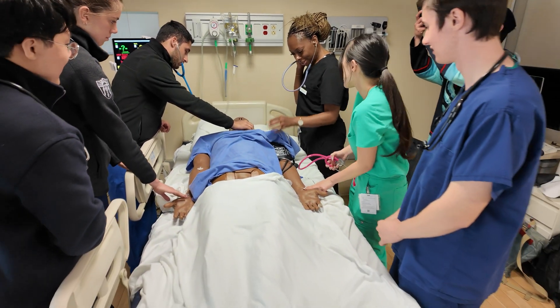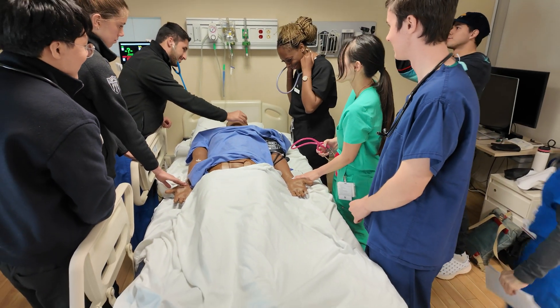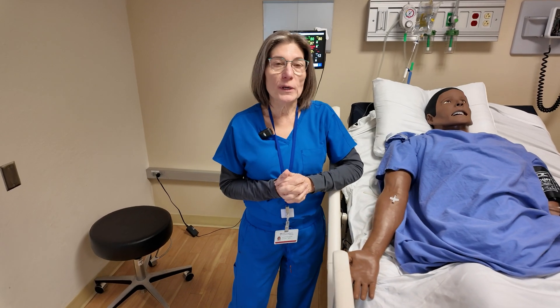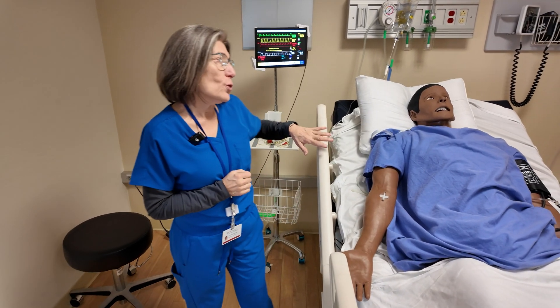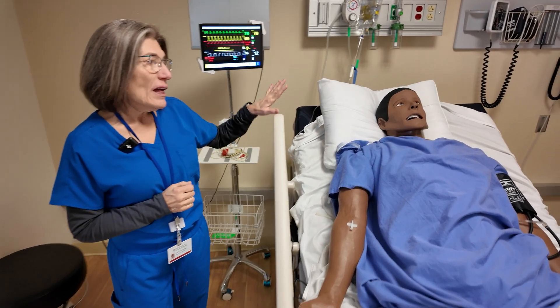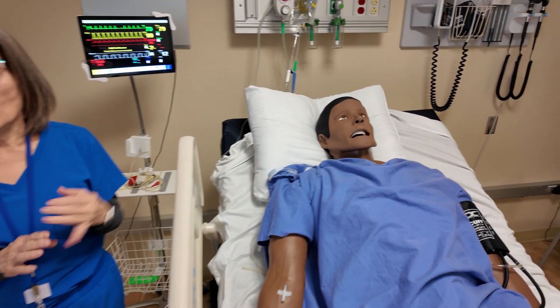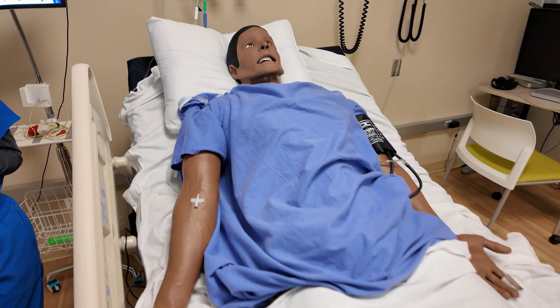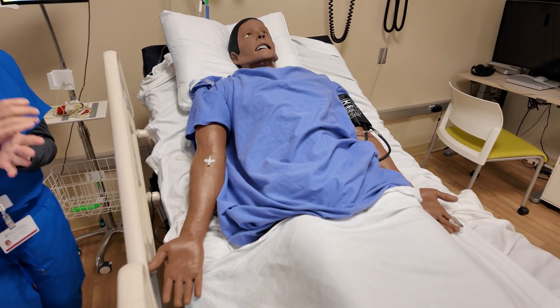Our simulators provide a lot of different resources that we can utilize. For example, they have different heart rates, different breathing rates, and different heart and lung sounds.